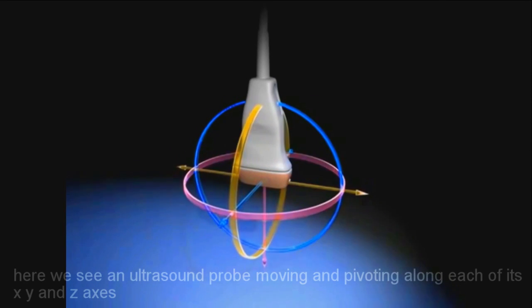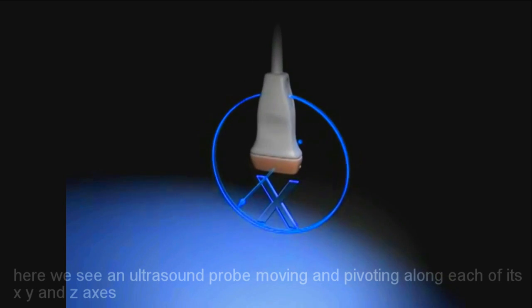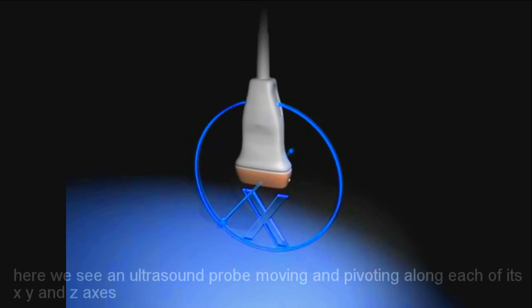Here we see an ultrasound probe moving and pivoting along each of its X, Y, and Z axis.